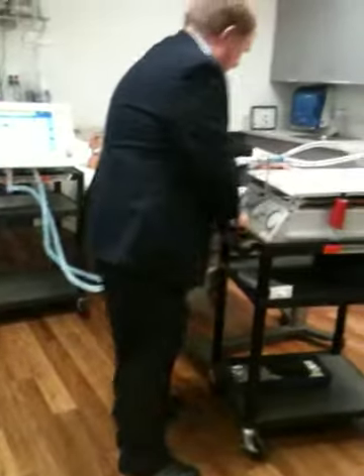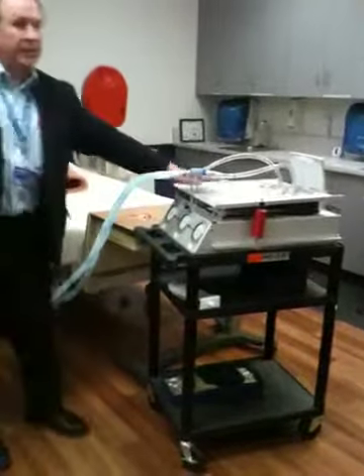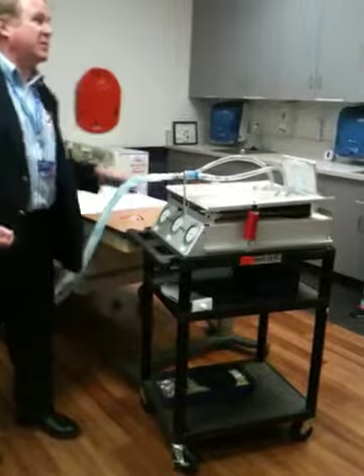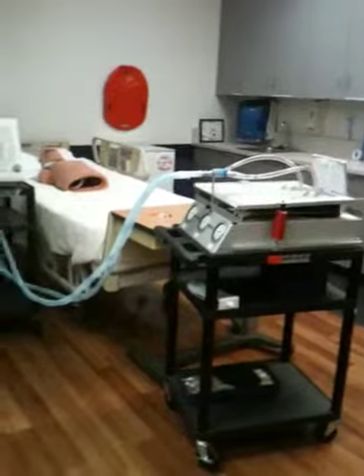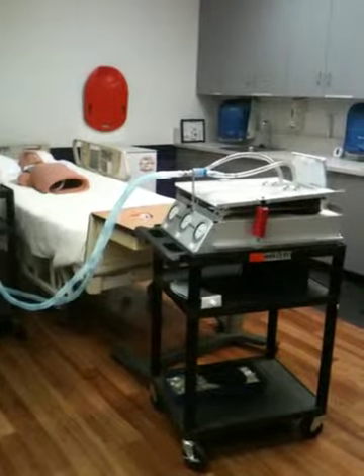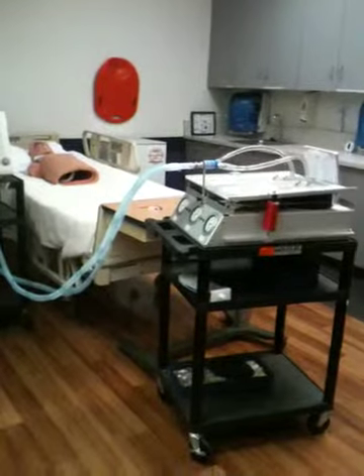For instance, if your patient has a pneumonia, we're measuring the average, but you'll notice this lung goes up, this lung is not as much. Air will always go the path of least resistance to follow. We're going to come back over here and say diagnostics. Loop.